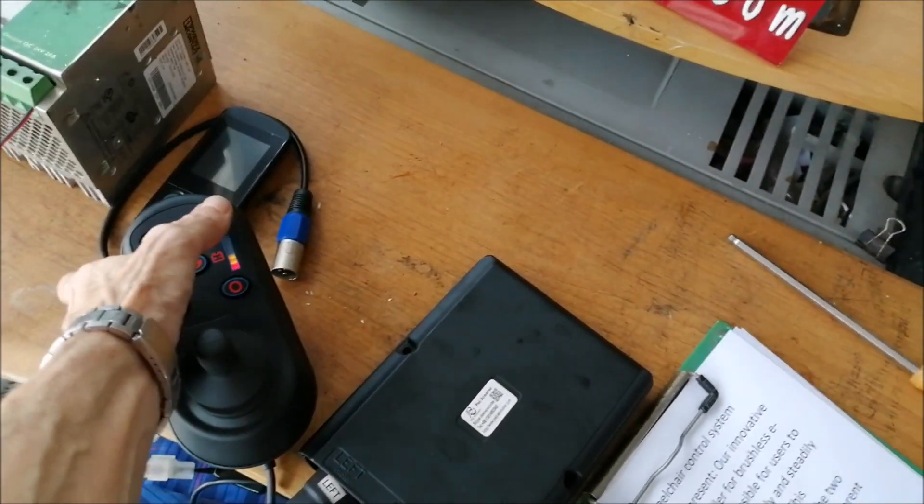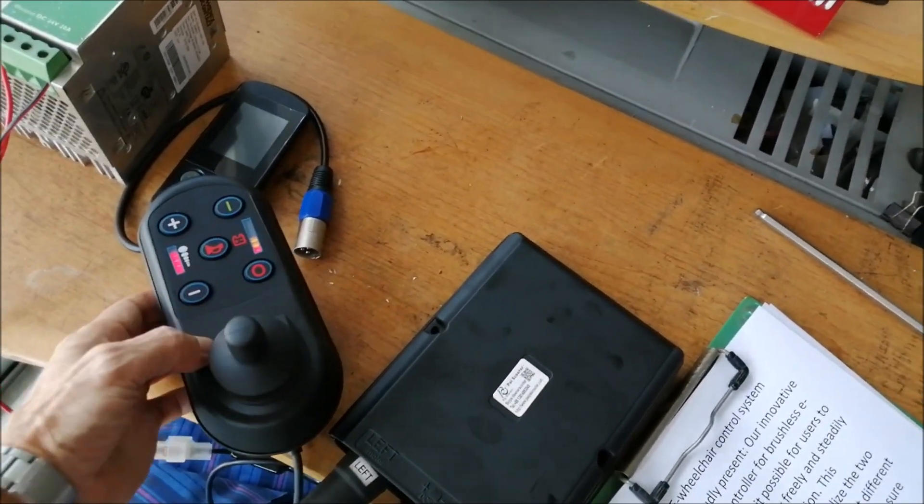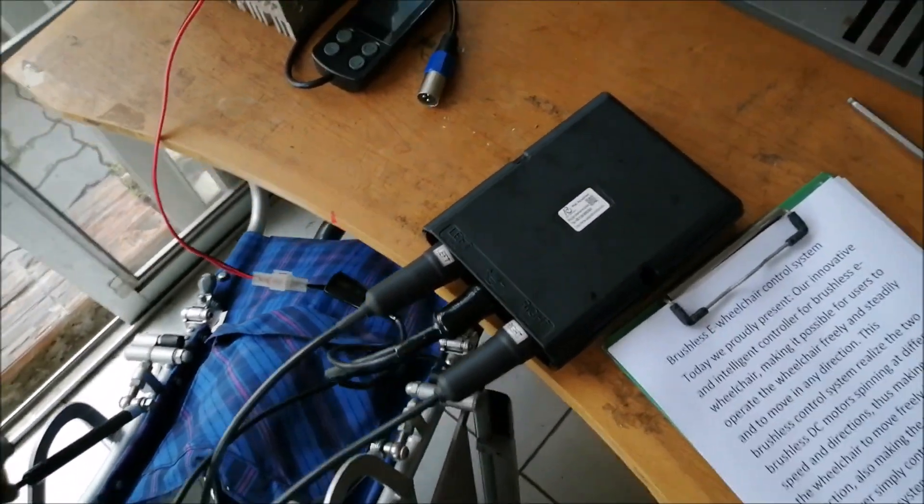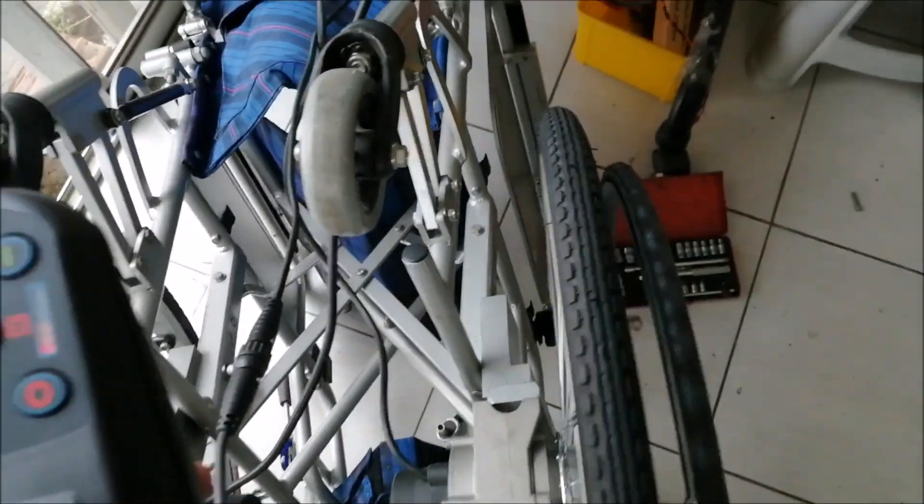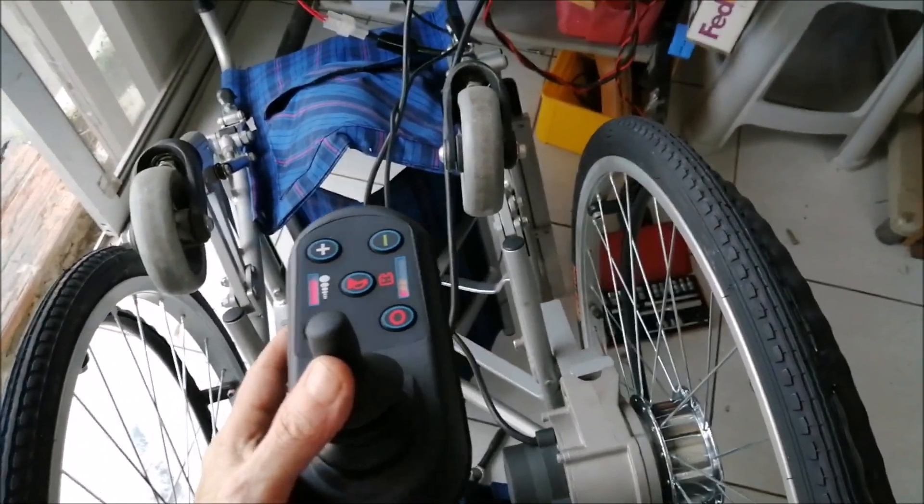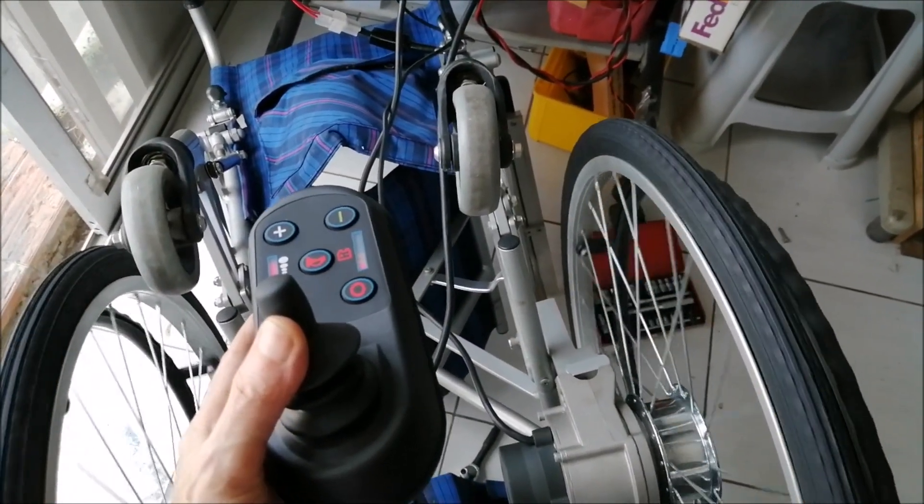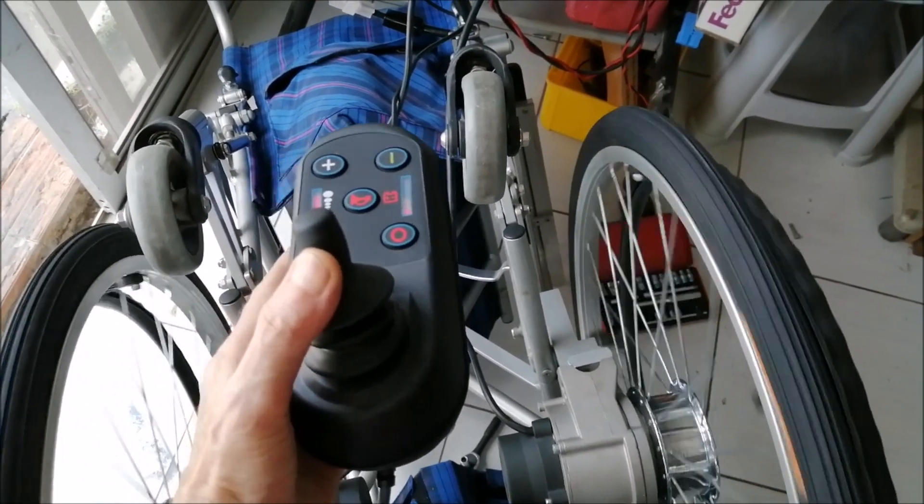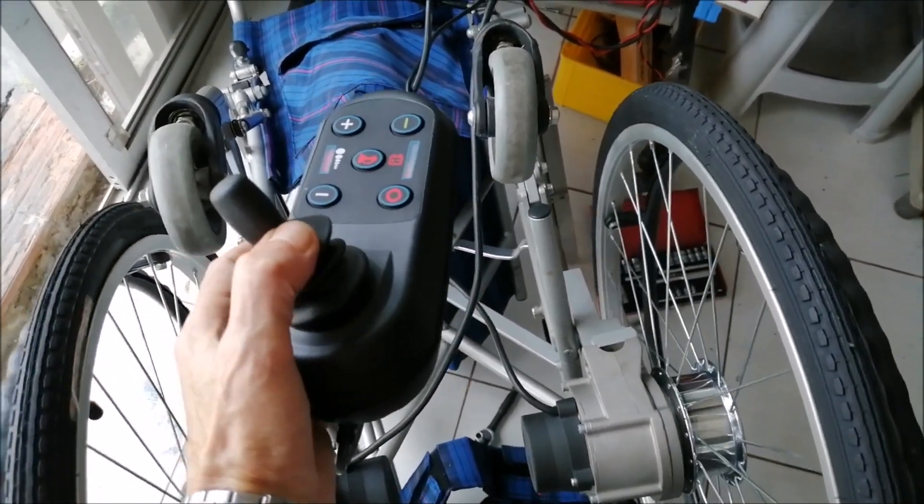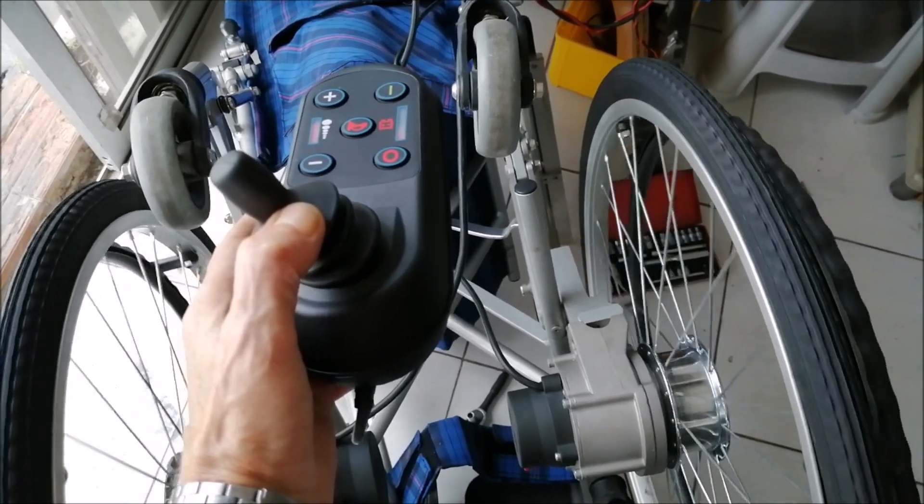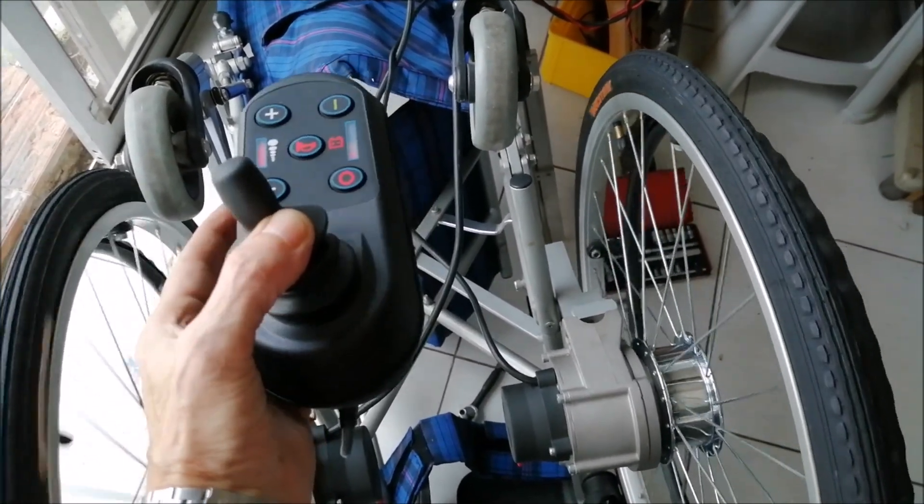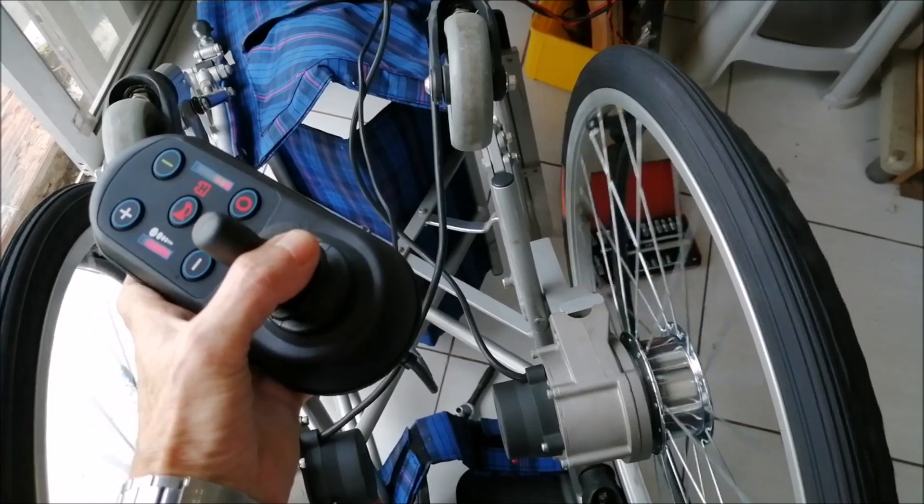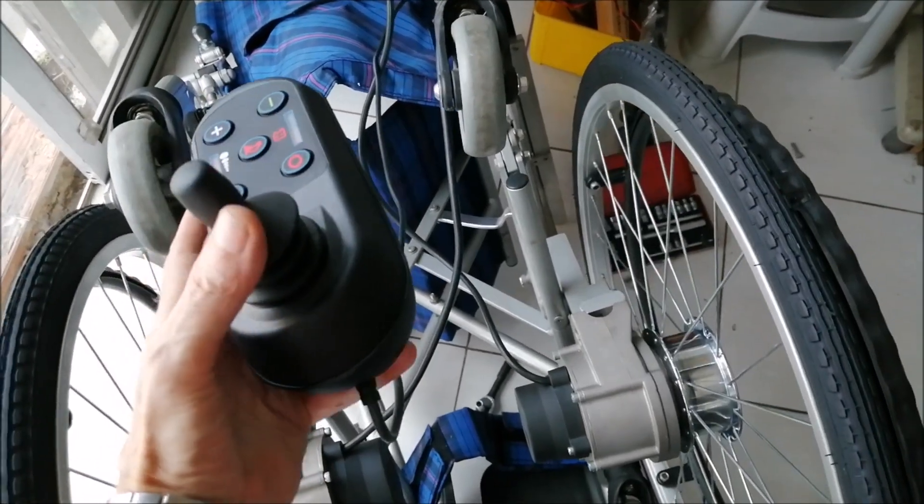So I switch the joystick on and as you can see the wheels rotate. If you go in another direction, you see that the wheels react to the joystick, so wheelchair maneuvers are very possible.